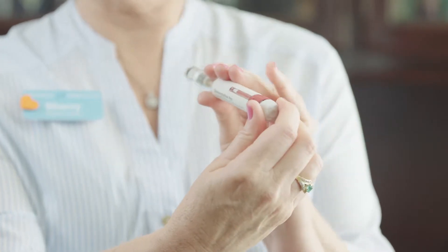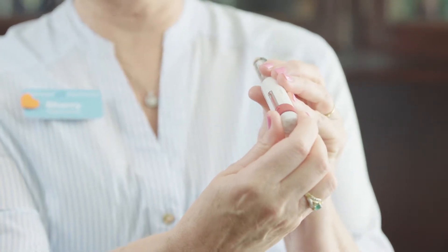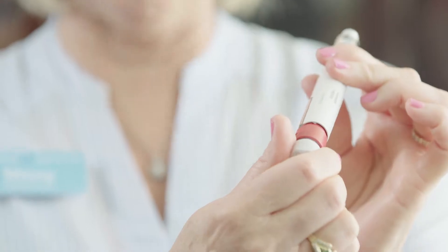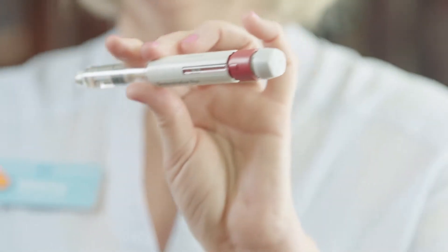You want to prepare the medication on a clean dry surface. To prepare your pen for injection, you will pull the cap off the pen. To dial your dose in, you're going to take the base of the pen, turn it away from you, and dial your dose into the window. Your nurse will go over the dose that your doctor has prescribed, but for demonstration purposes I'm going to dial in 75 units into my pen. If you pass the dose when dialing, you can just go back — it's easy to get the dose dialed in.